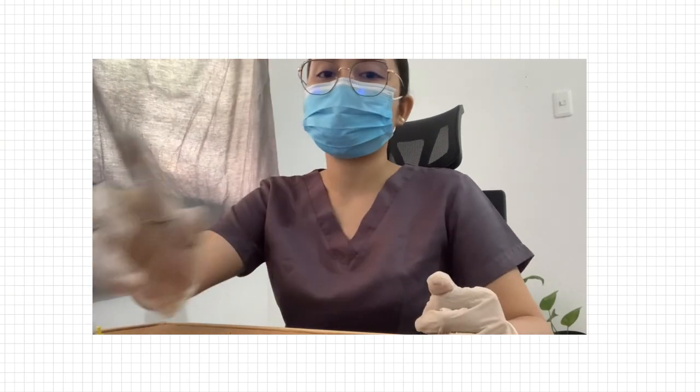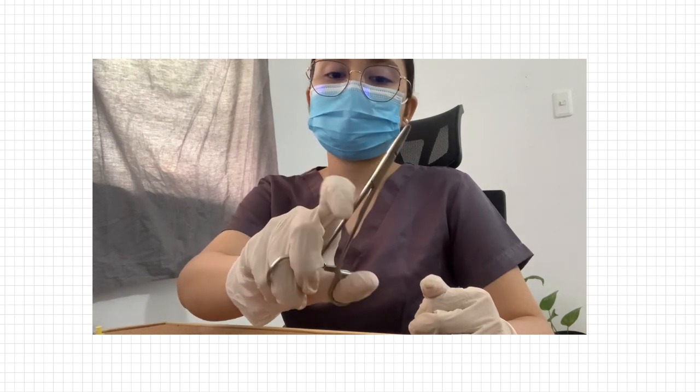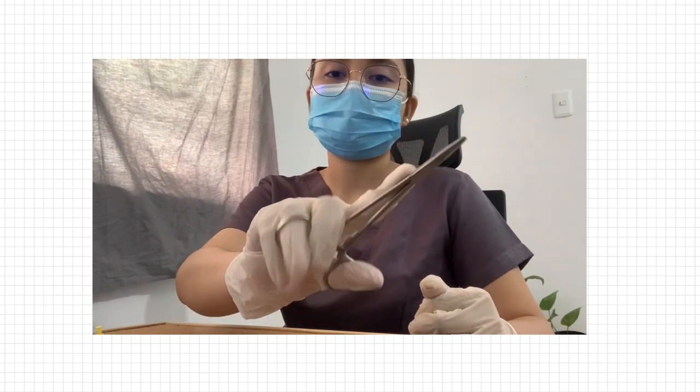So guys, you have to hold the forceps like this. Thumb, finger, middle finger, ring finger.